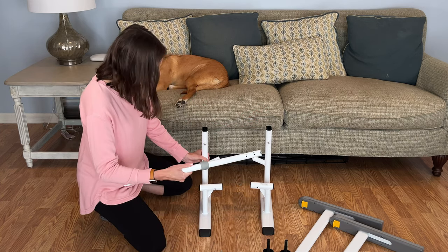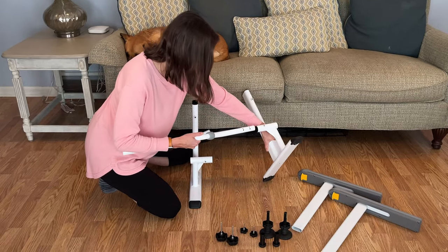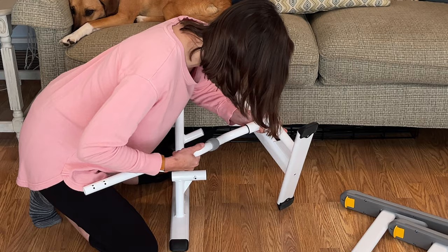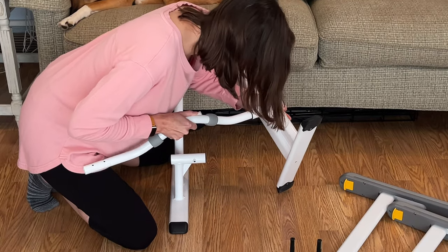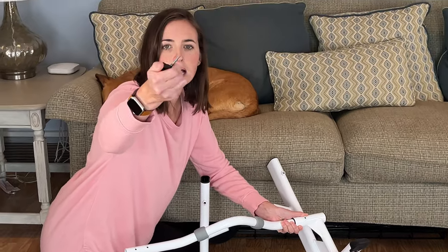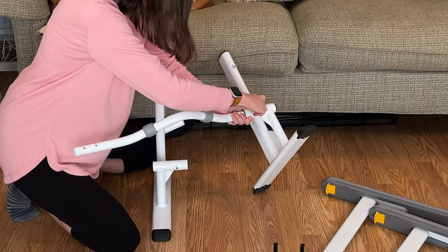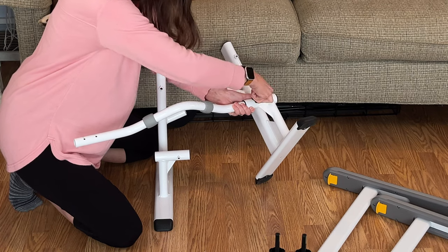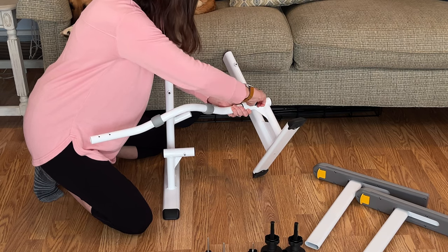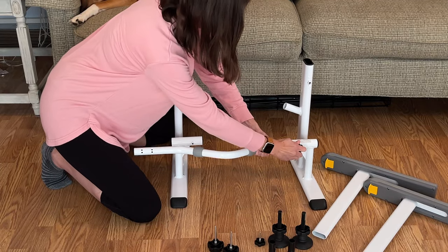So we're going to find this and start by separating these out. I like to kind of tilt it up because you're going to have to line up the holes. I'm going for the 27-inch because I have a fairly narrow bathroom. When we go to install it, you're going to find the smaller set bolt — they have nice hand-tightening knobs — and you're going to slide that through. When you start tightening it, make sure it goes on relatively easy because you don't want to be cross-threading. It should go in nice and hand-tight snug.